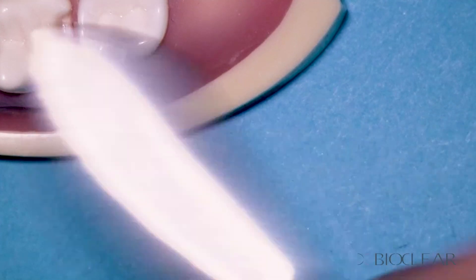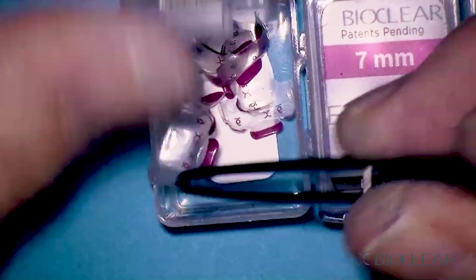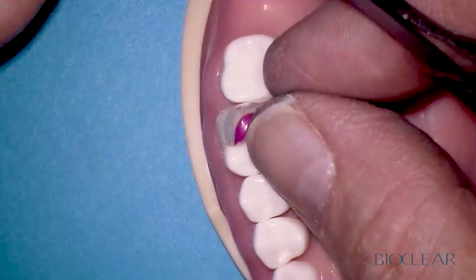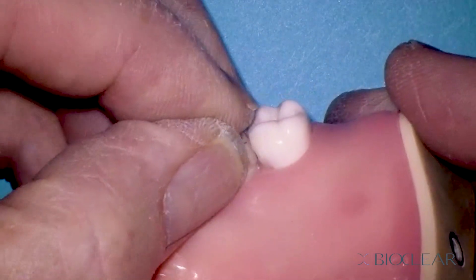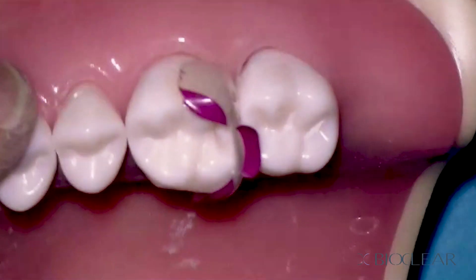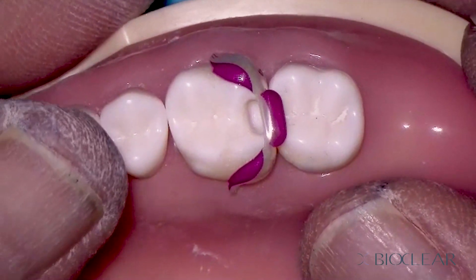If you have a very large tooth, you could use the pink, because this is the flattest of all three emergence profiles and it's also the largest. You have certain patients with huge molars, and also patients with root proximity or rotated teeth where you don't want that much curvature. In this case, the pink would be the best matrix. I don't use these that often, but when you see a wide, flat tooth and root proximity visible on the radiograph, that is a really ideal matrix for that situation. So those are our three choices — there's a matrix type indicator. Have fun.